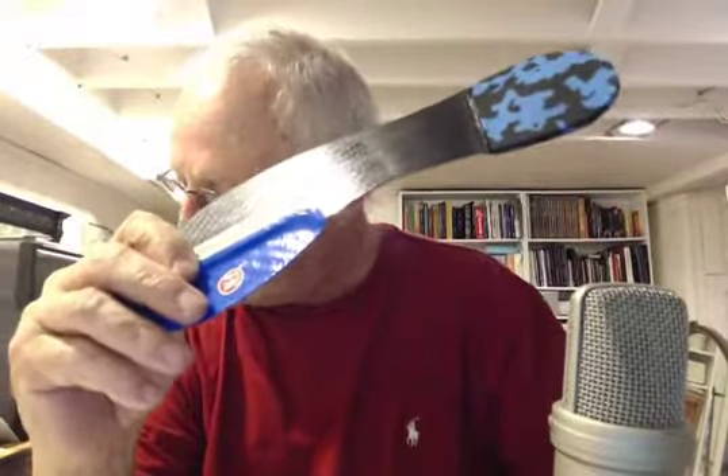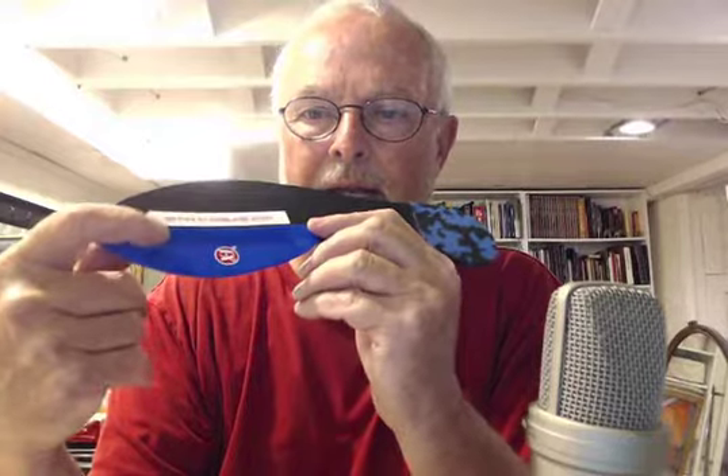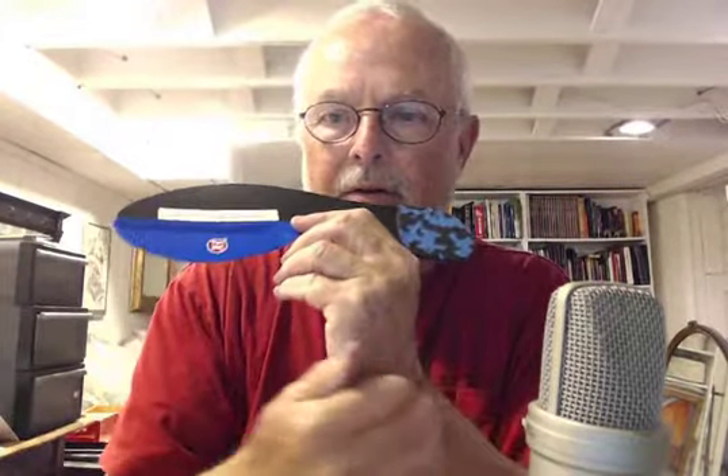Looks like there's severe thunderstorms here in Boone County — sorry about that. Also, just rigid under the big toe, but a two millimeter drop to clear her bone spur on top of her toe so it doesn't rub on top of the shoe.